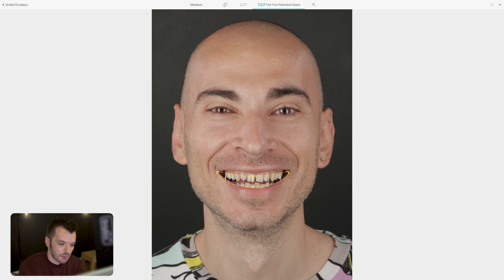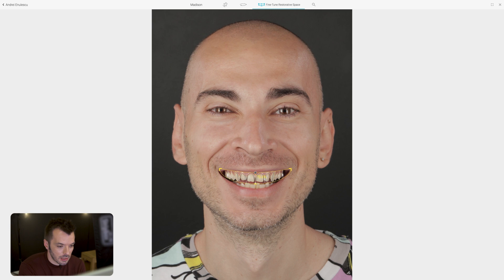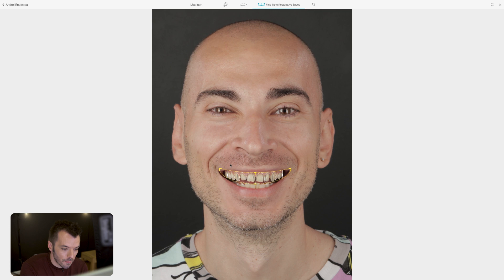The next step is the restorative space — this is where it gets important. You need to double-click, which does an automated directional zoom on the smile. The first decision is always where to place the midline. In an ortho scenario you can place it anywhere since you'll be moving structures around, but in a prosthetic scenario you're limited to the existing midline plus a couple of millimeters of tolerance left or right depending on how invasive you want to be.